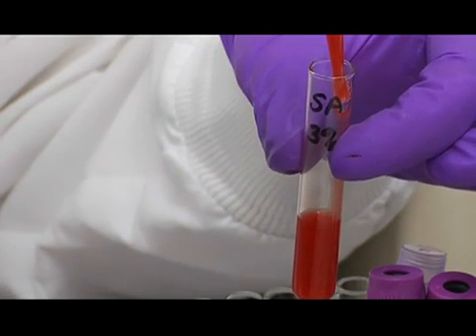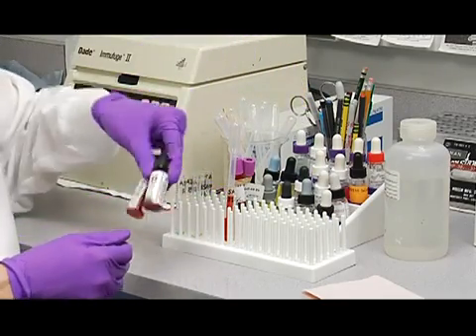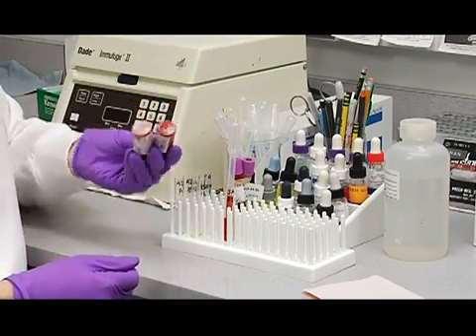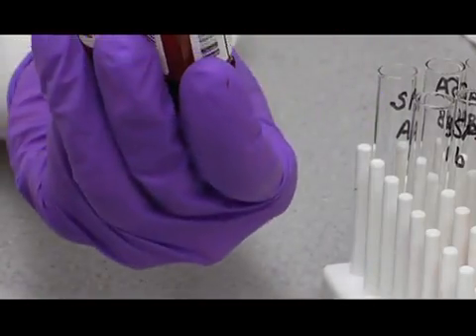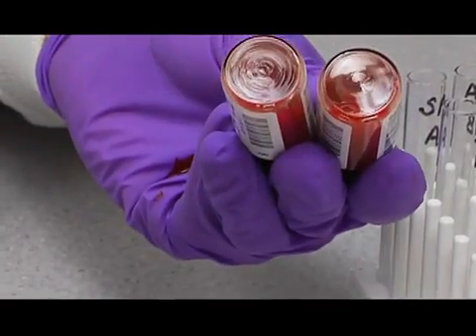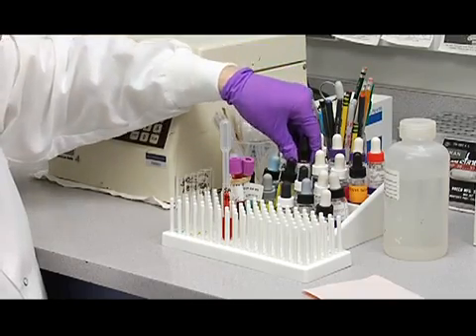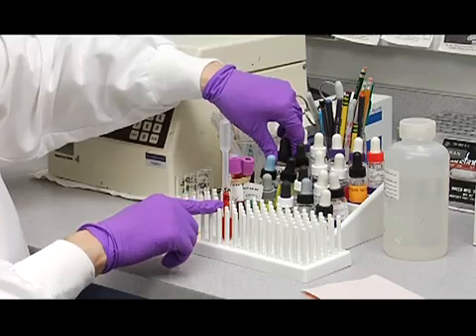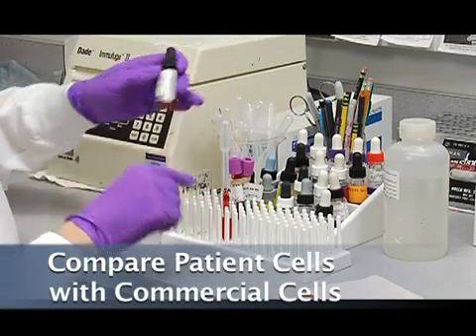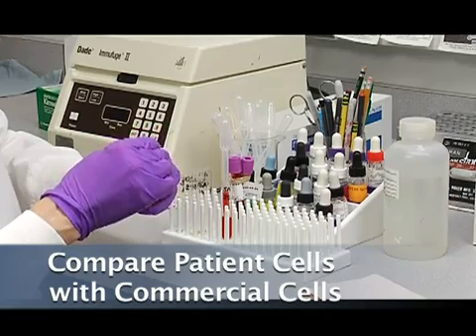So we'll mix our A and B cells here. Okay, now you can see that the cells are off the bottom of the vials here. And we're going to compare our suspension in the pipette for our patient with the suspension from our commercial cells.